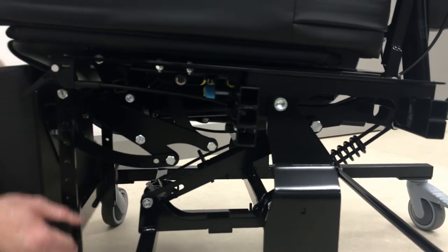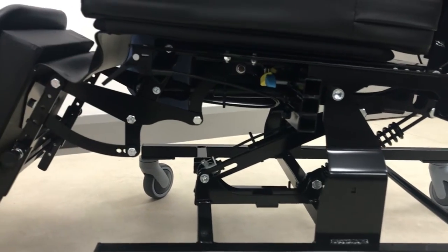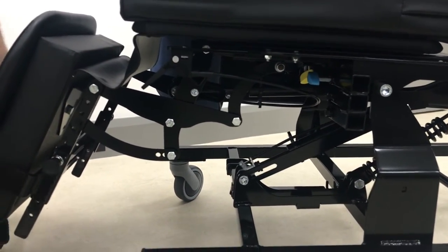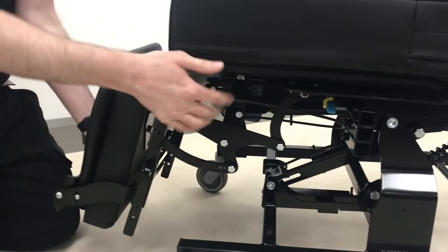So it means then that I can use this leg rest like so. And then if you want to put that back in, just pull it out and release it in and push it in.